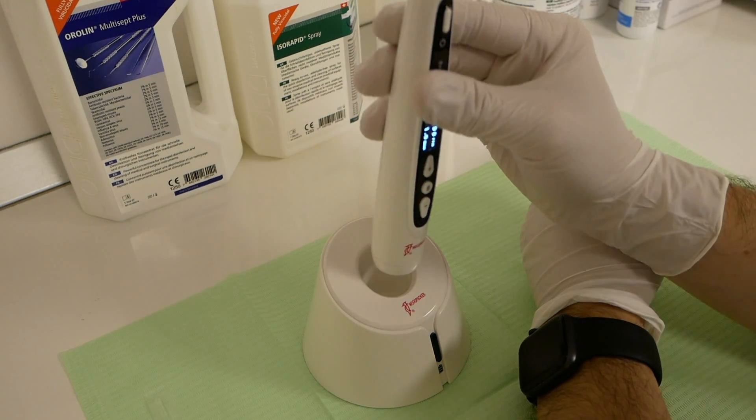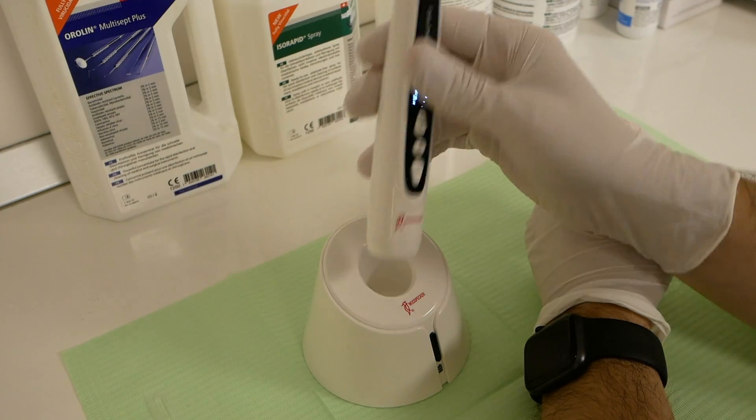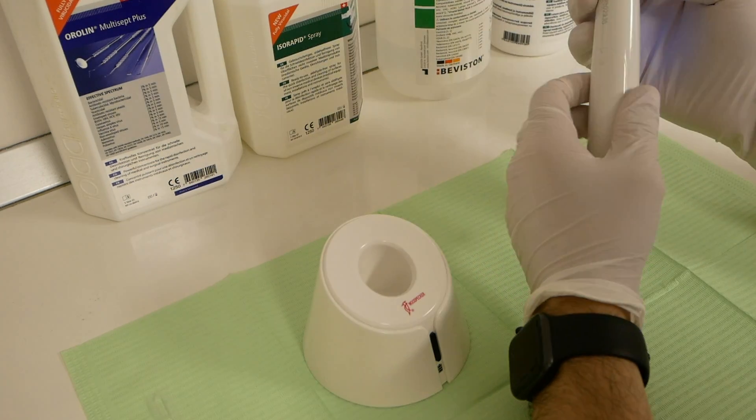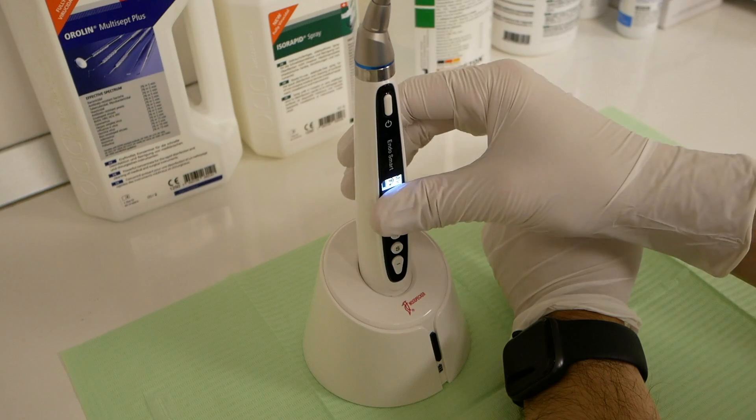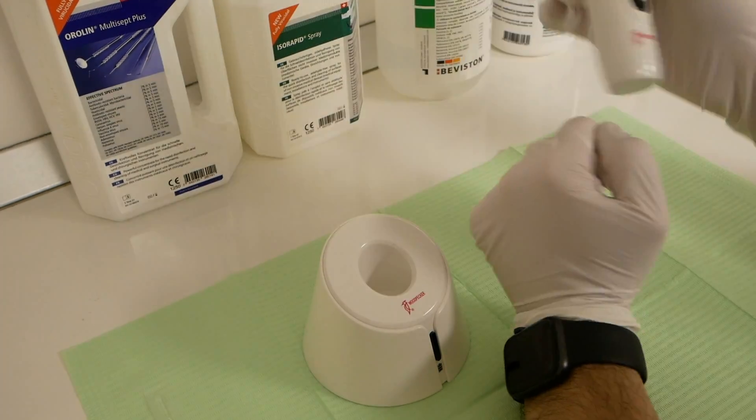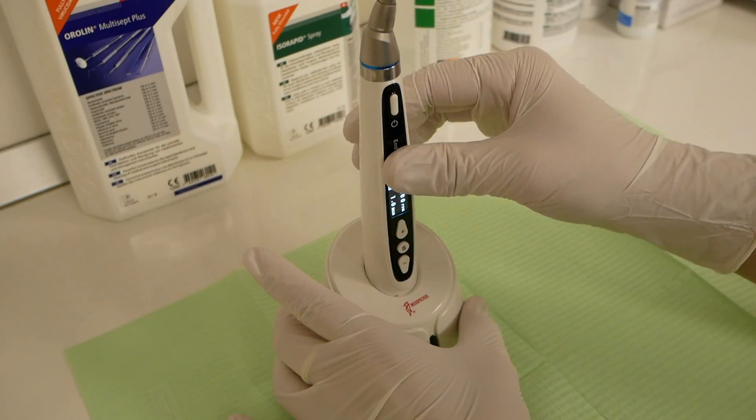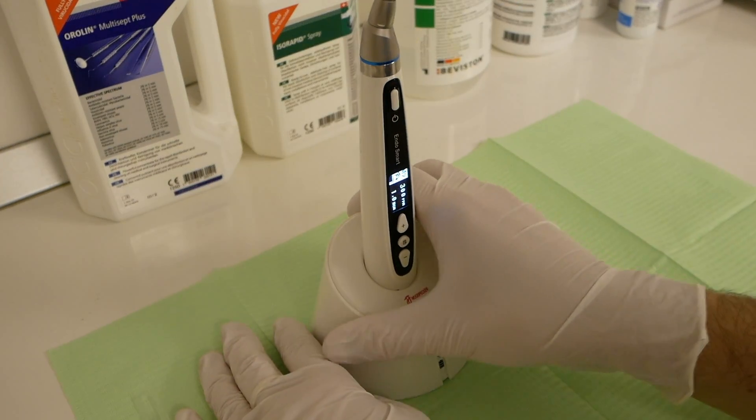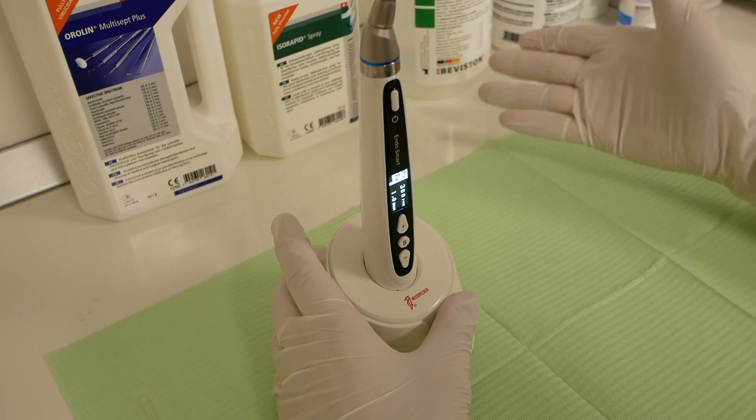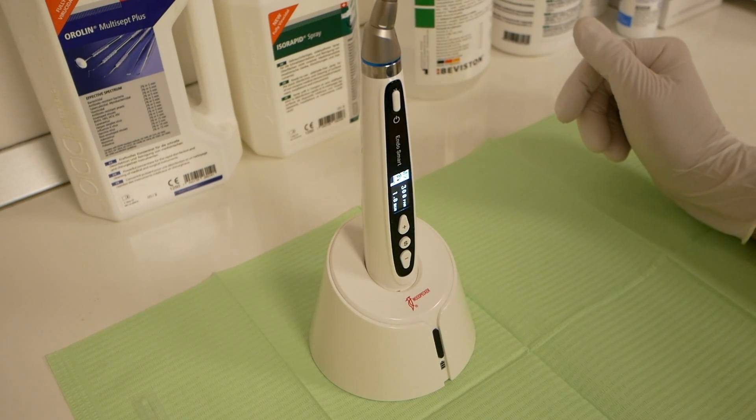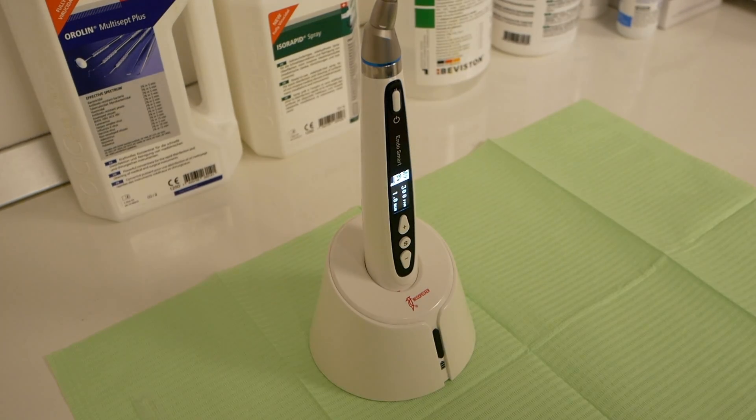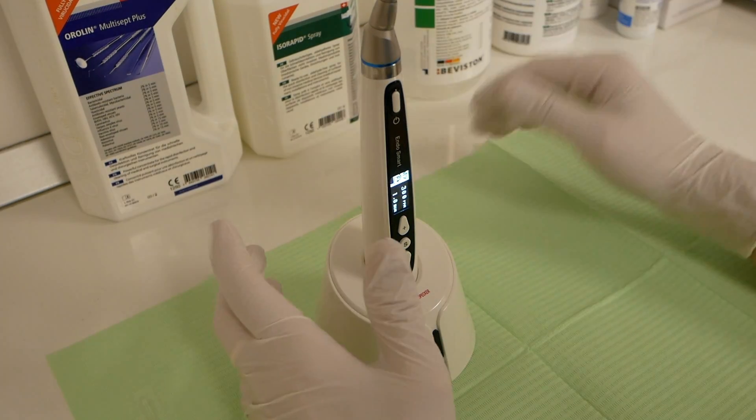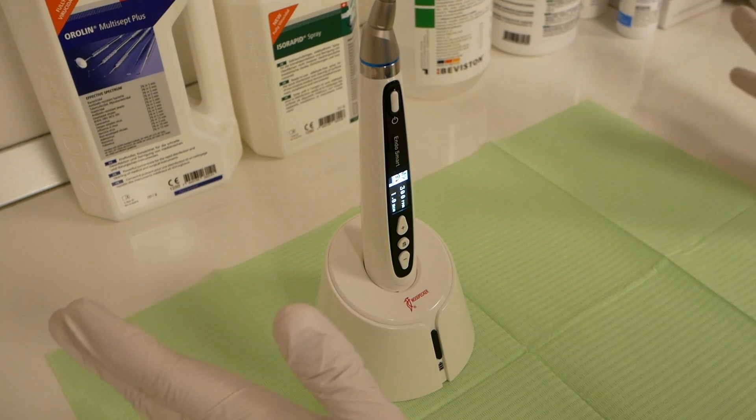It charges via induction, so no direct contact, no charging socket of any kind. You just place it in the support here. The support, of course, is connected via an outlet. It charges in about one hour or something less than an hour, very quickly.